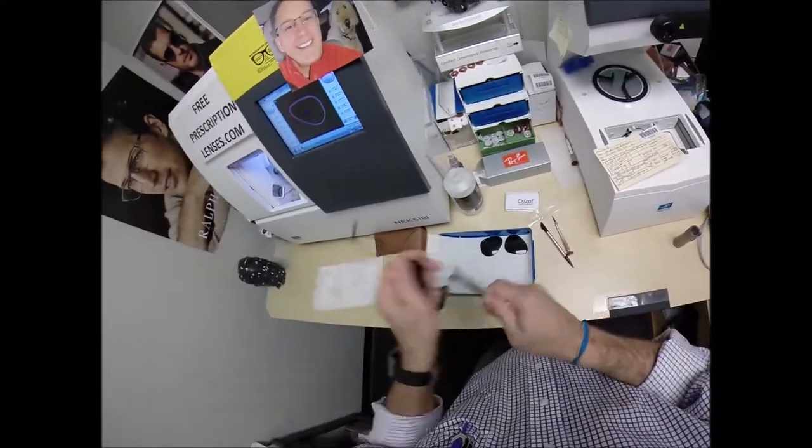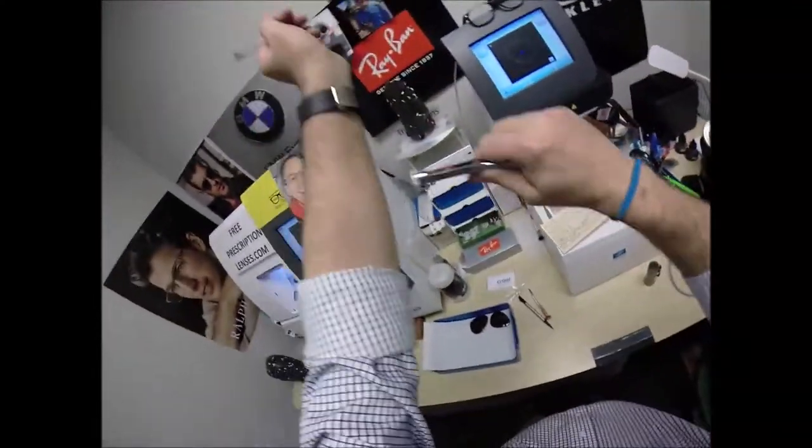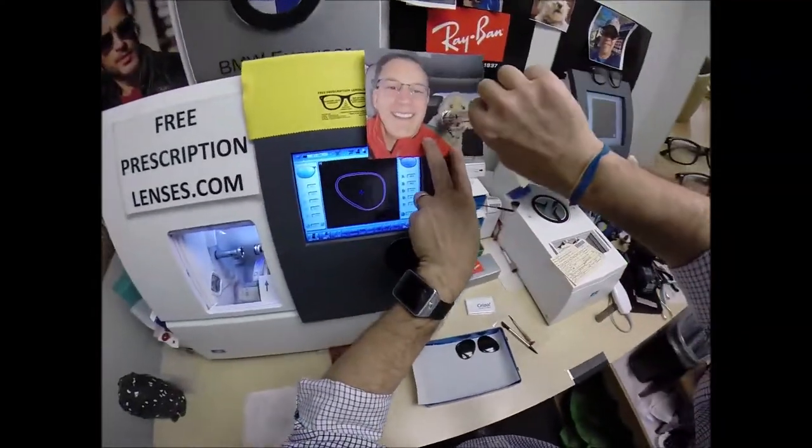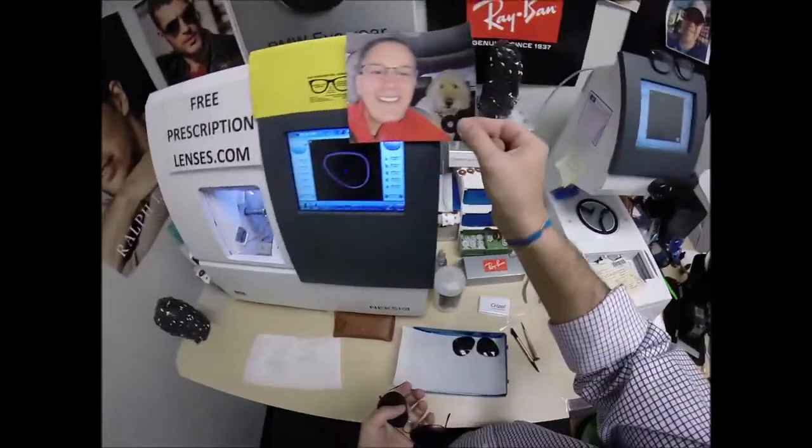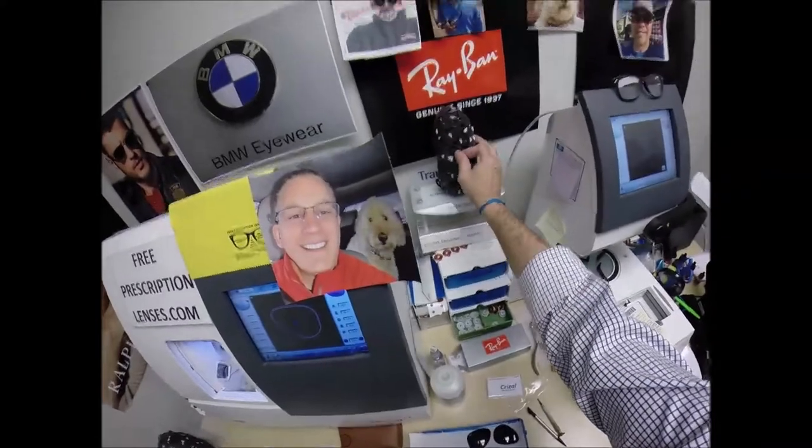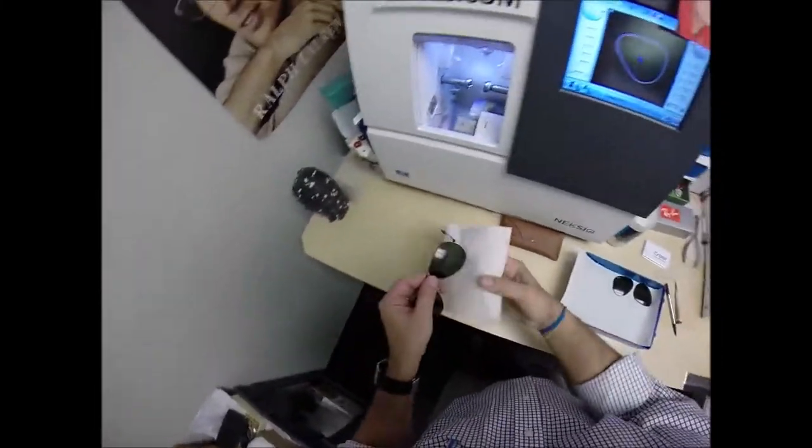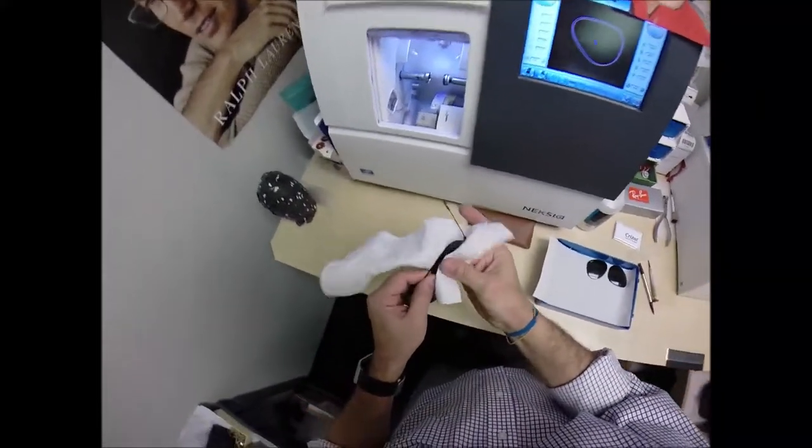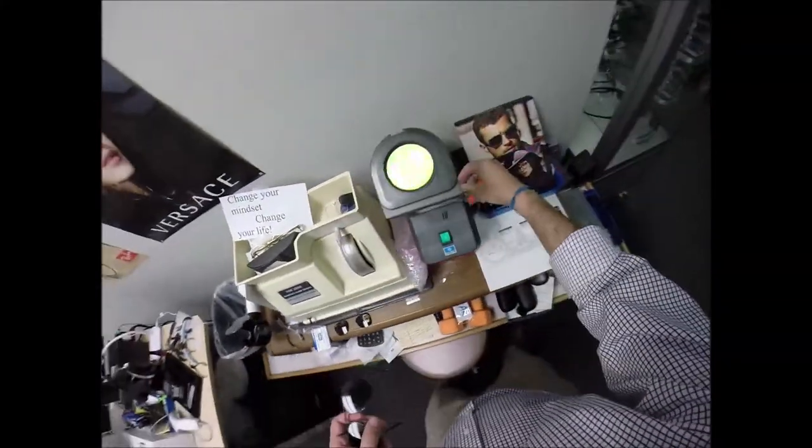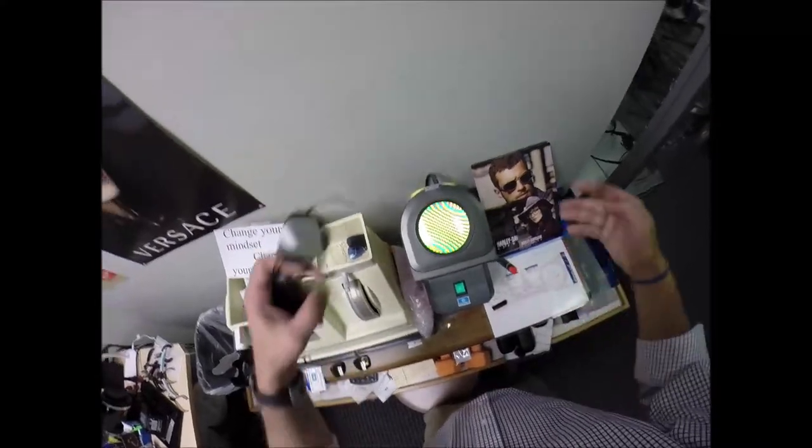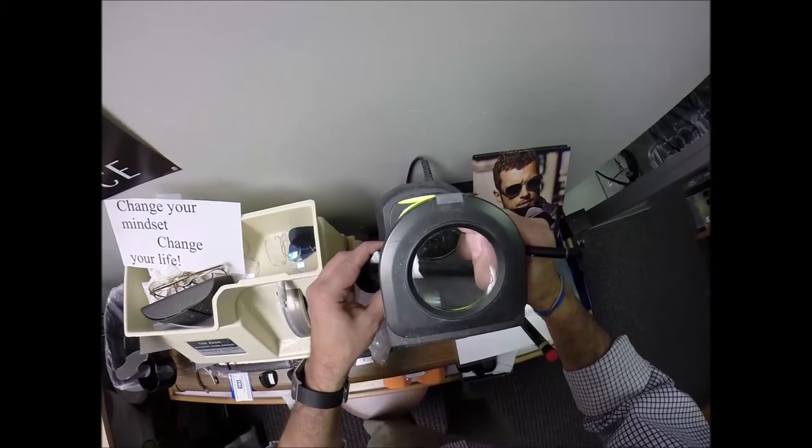Let me take this off, dry that off with my hand, use my back of the hand drying method, use my forearm drying method, use George's drying method, throw that back in there. I'm going to throw him a bone, put that on there. Don't worry you won't be like Larry, no one's going to get harmed in the manufacturing these glasses. So I'm going to be gentle, you guys are nice enough to be repeat customers I'm not going to run anybody off. I might run myself off but that's another story. Wouldn't it be great if you could fire yourself.